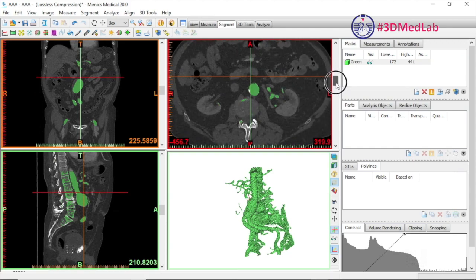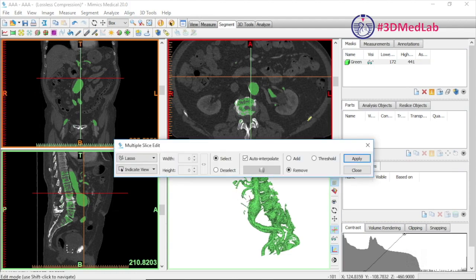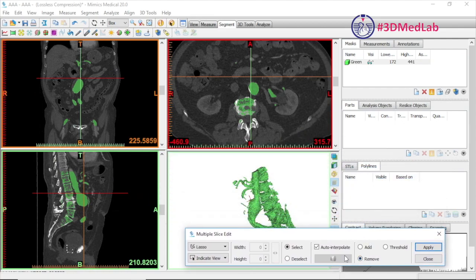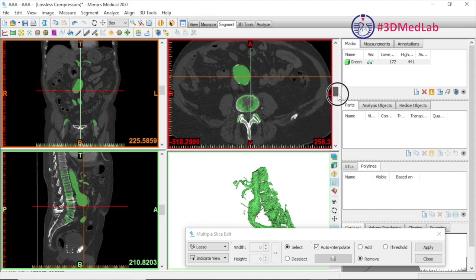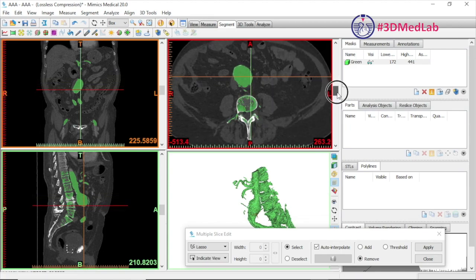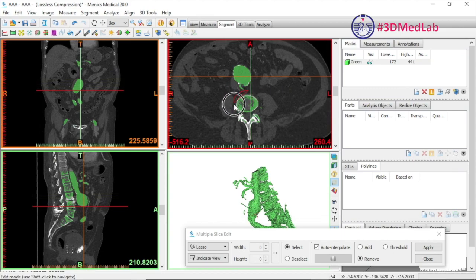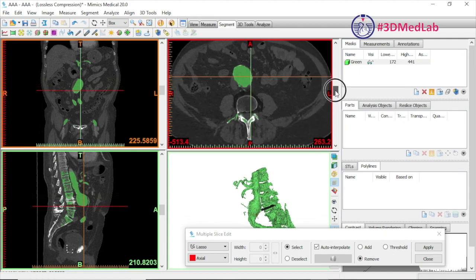To remove that connection we'll use the slice edit function — there's a single slice edit and a multiple slice edit. We're going to use the multiple slice edit tool. Make sure you've chosen the remove selection and use the lasso function to define the removal segment. You can see there are areas where the vertebral body is very close to the aorta, and there's also a lumbar artery there to remove. Using the lasso we select out the vertebral body, marking the area we're no longer interested in. We can move up and down a few slices and do it again — the software will interpolate the area between the two selections, shown as a black segment in the 3D preview and in the axial views.